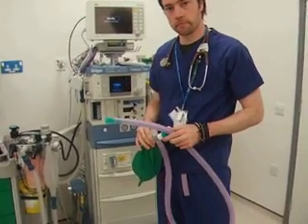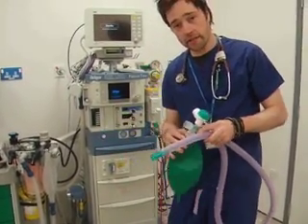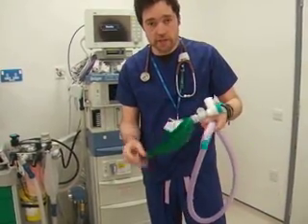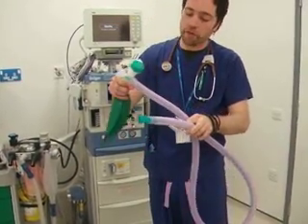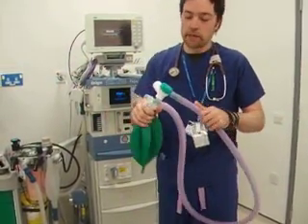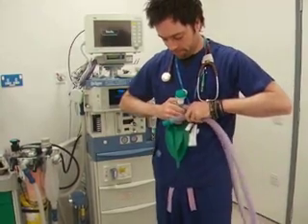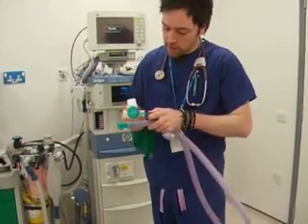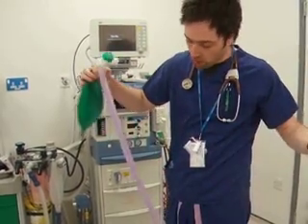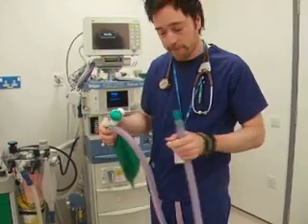And can you show me how you would check this circuit? Firstly, I'd visually inspect it. I'd check there's no obvious tears or deformities to the bag. I'd check there's no obvious cuts or holes in the outer tubing. I'd then check the inner tubing — that it's attached to the machine end of the circuit, there are no obvious holes or tears in it, and that it's attached to the patient end of the tubing.